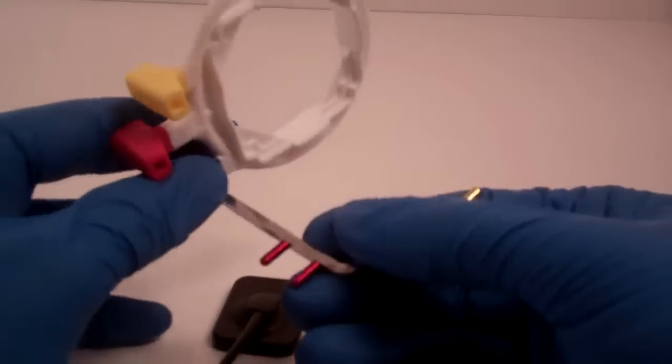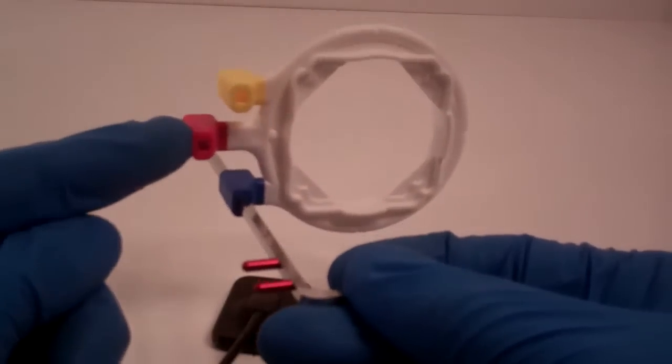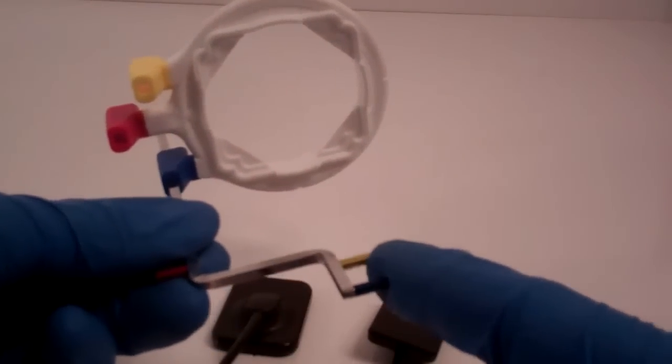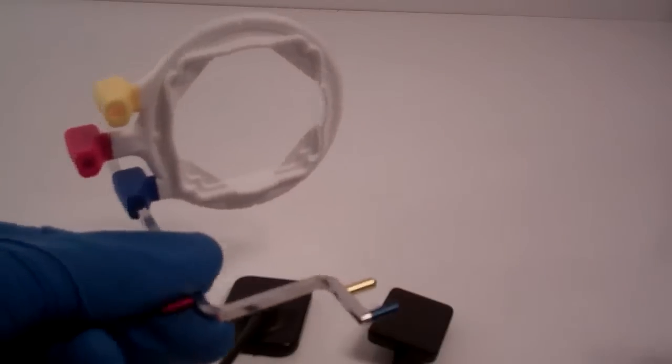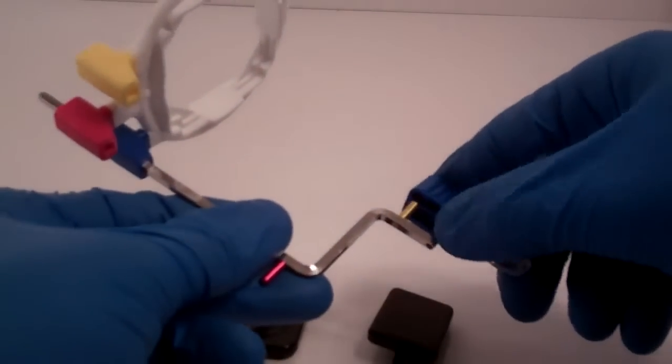So let's line it up for an anterior. So we can see that our colors are on the side. The pins that we're going to use are facing the other direction.